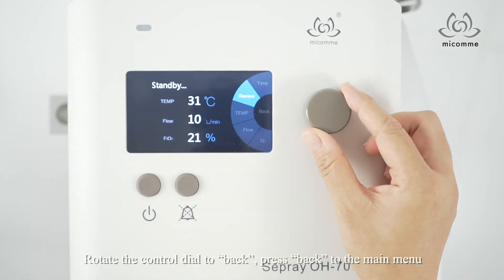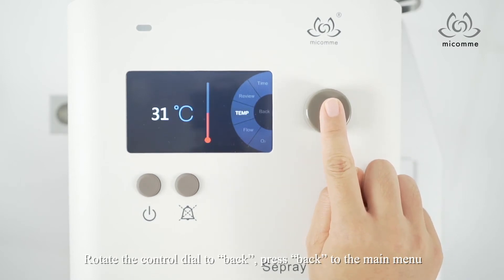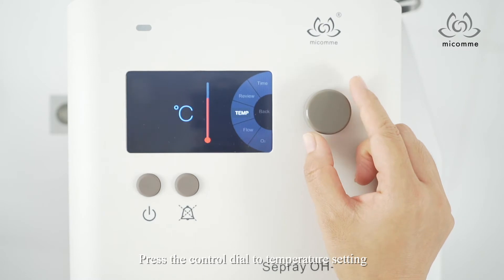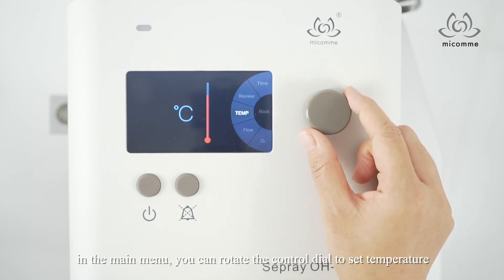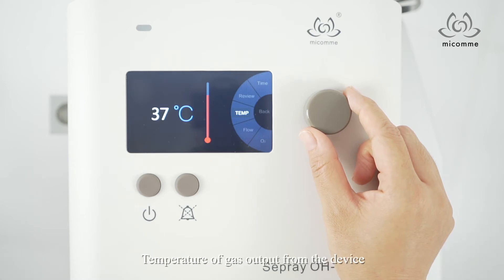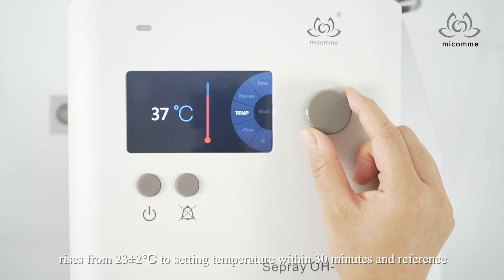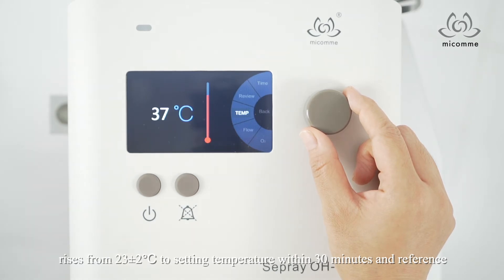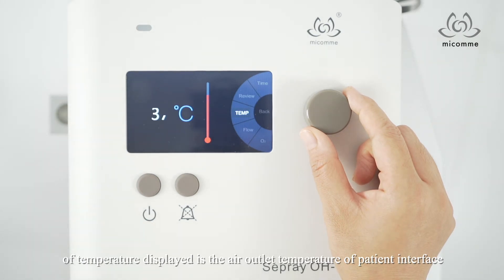Rotate the knob to back and press back to the main menu. Rotate the knob to temp and press the knob to enter the temperature setting. In the main menu, you can rotate the knob to set temperature. Temperature of gas output from the device rises from 23 ± 2°C to the setting temperature within 30 minutes, and the reference temperature displayed is the air outlet temperature of the patient interface.